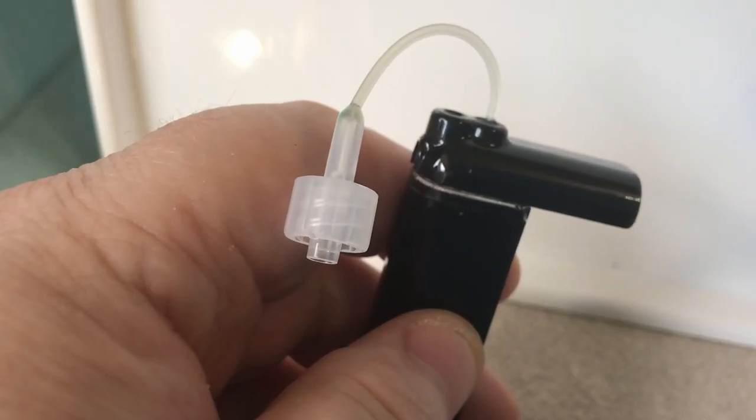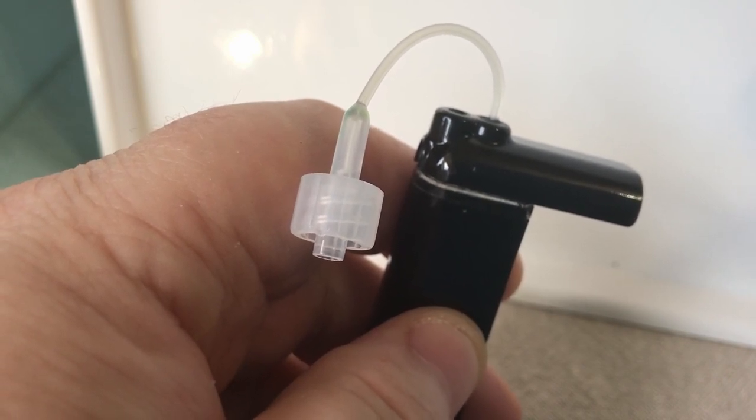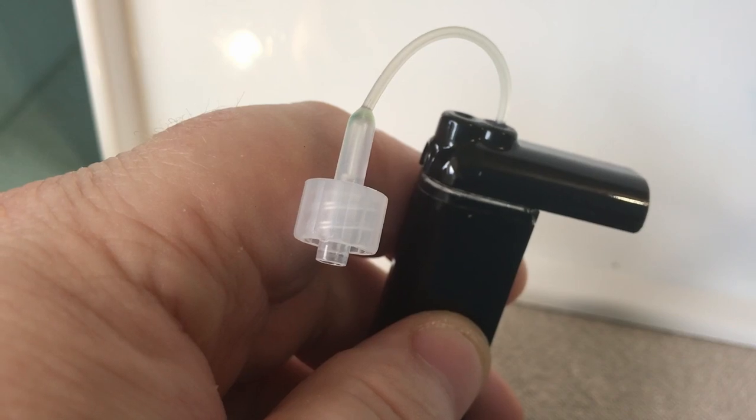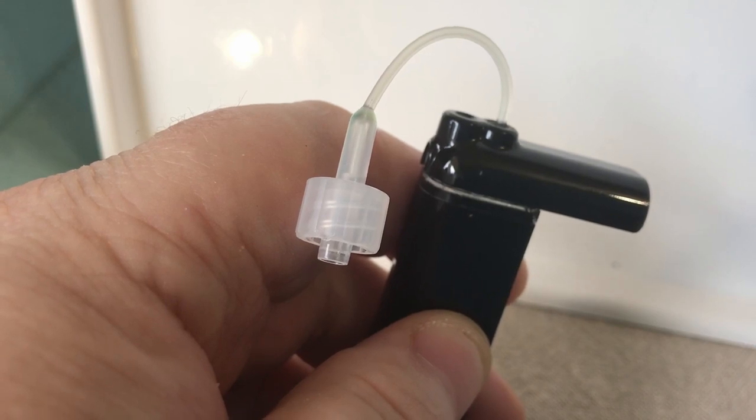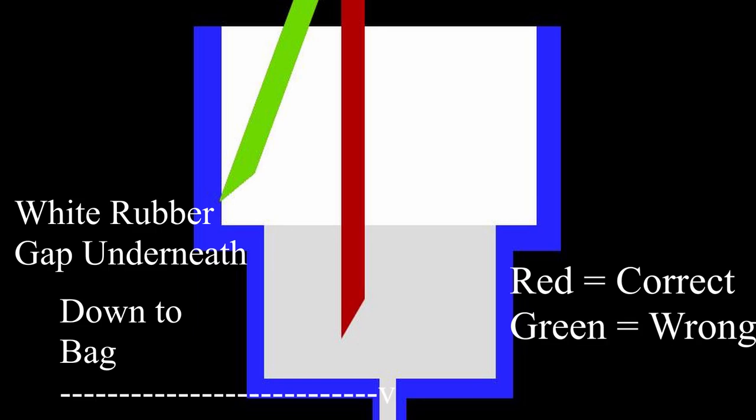Okay, so we all know that process. A number of people suffer from what has been called coring of the white rubber. I'm going to overlay a picture or a couple of pictures that show the insides, and then a diagram showing the needle both in the wrong place and when it goes into the right place. You usually know it - the needle will go in further.